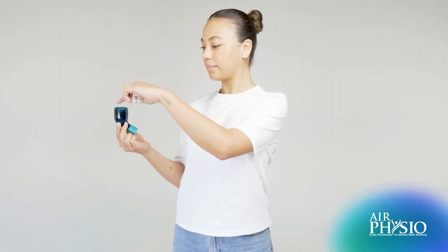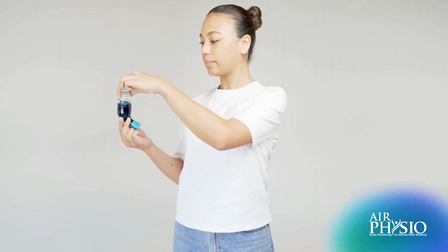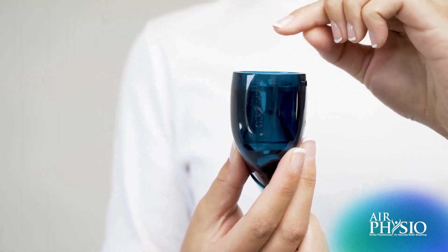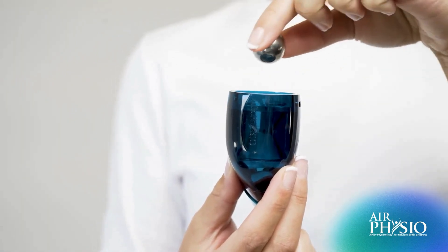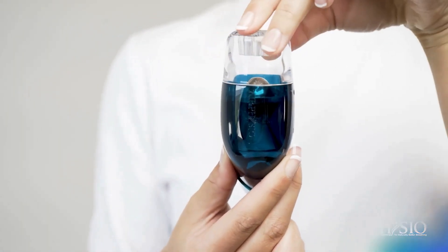This process also helps to make a more efficient cough and allows you to remove foreign particles and excess mucus from the lungs, whilst also helping to expand your lungs and helping the mucocilia escalator to function more efficiently for removal of mucus from the lungs.